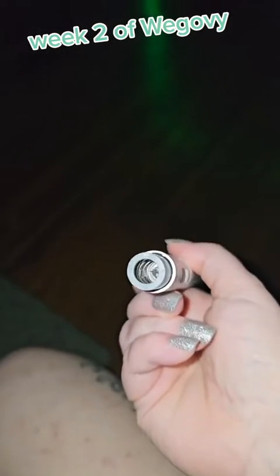We're just going to pinch it, and then we're going to inject it. I don't even know if I'm going to pinch it. So I am going to take my little alcohol pad and we're just going to wipe. And so the needle's in there.